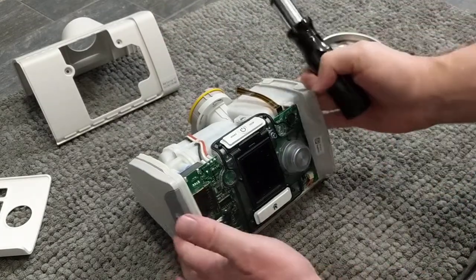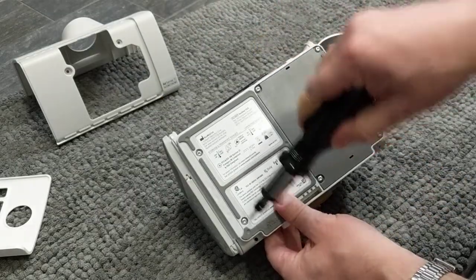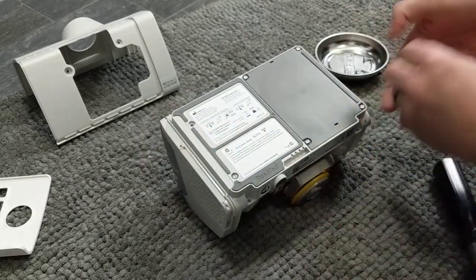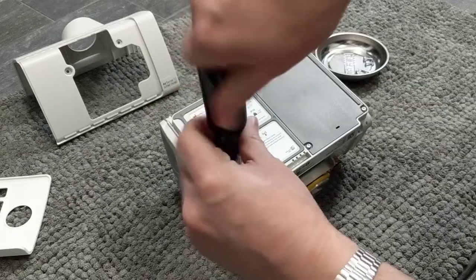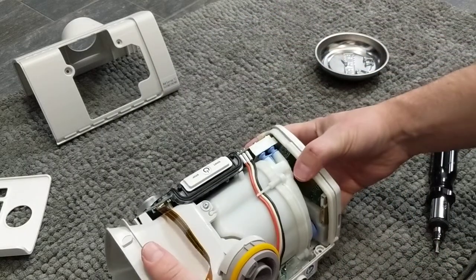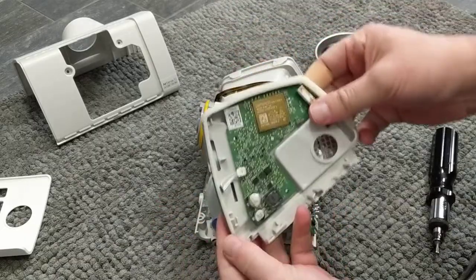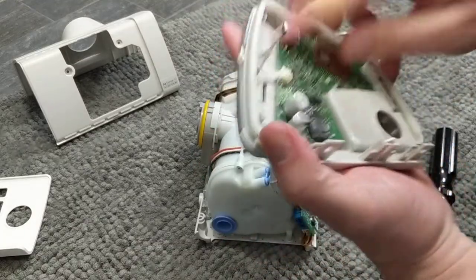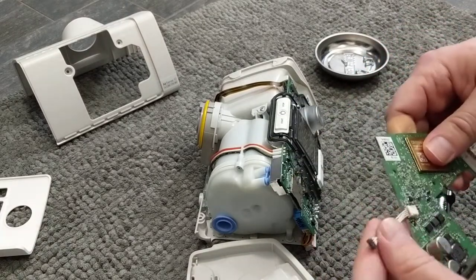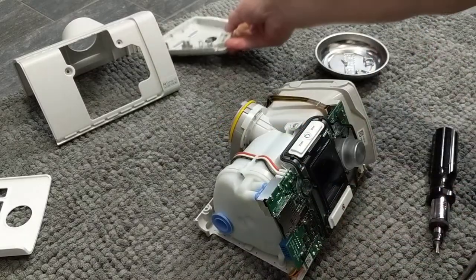However, I want to take this down a little bit further. The next piece to come off is this side plate that holds a bunch of stuff in. Come under here — you can see two screws. Screw number one, screw number two. Now this side plate that contains the modem just comes straight out — just ease it out. There's the modem, and it just pops out. You can leave it in there if you want. In fact, you can plug it back in if you want over-the-air updates or if you sell it to somebody who wants to connect it to their insurance.